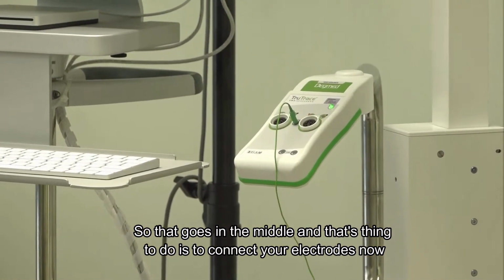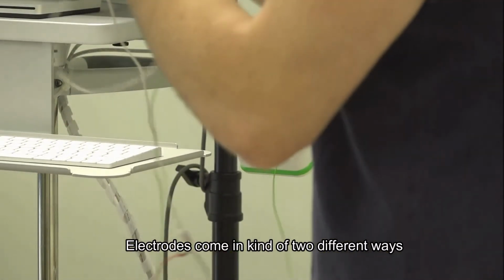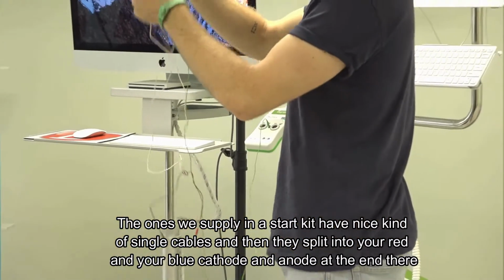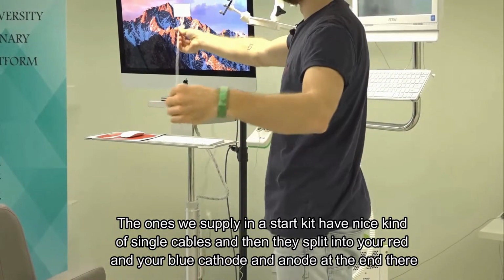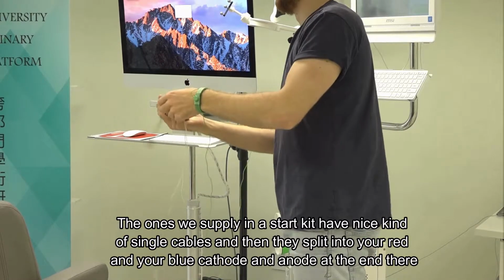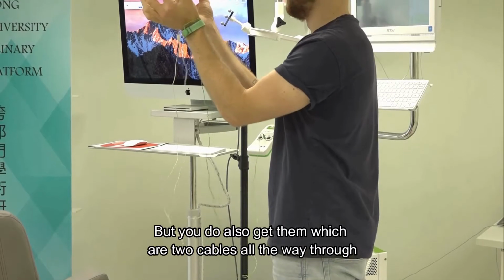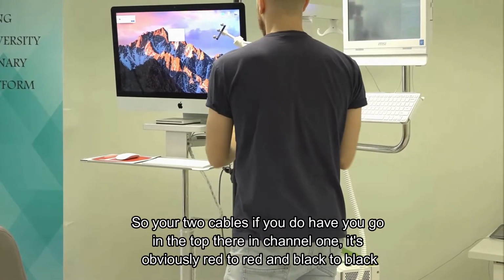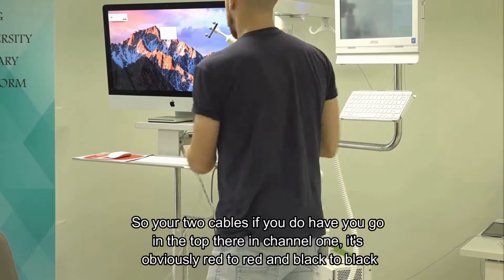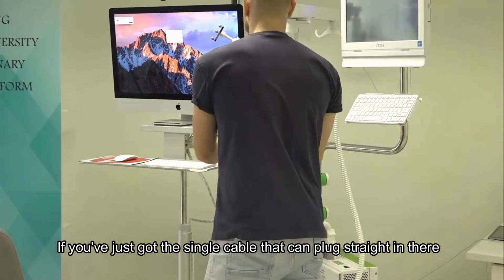The next thing to do is to connect your electrodes. Electrodes come in two different ways. The ones we supply in the starter kit have single cables, and then they split into your red and blue cathode and anode at the end. But you do also get them with two cables all the way through. If you have the two cables, you go in the top in channel 1, so red to red and black to black. If you've just got the single cable, that can plug straight in there.